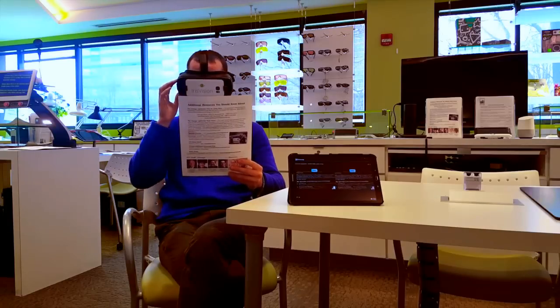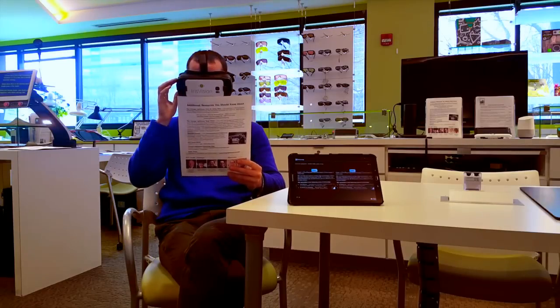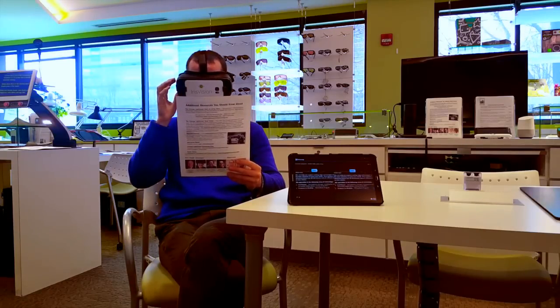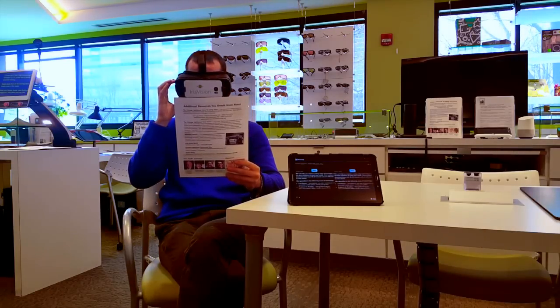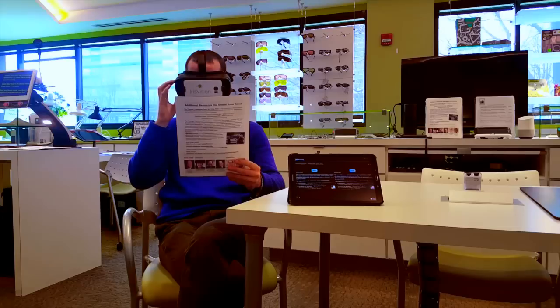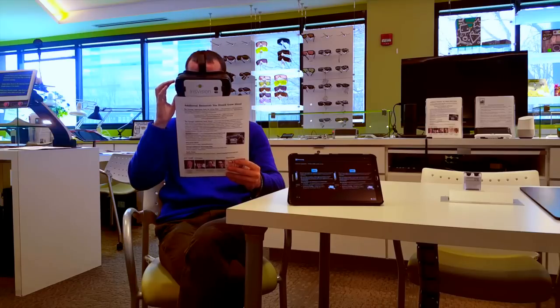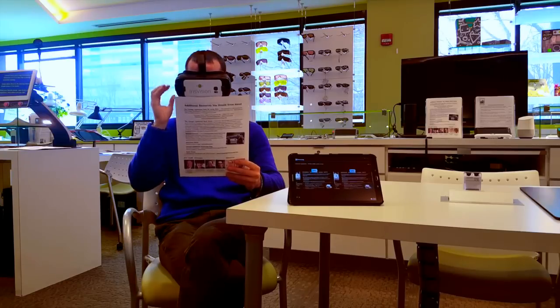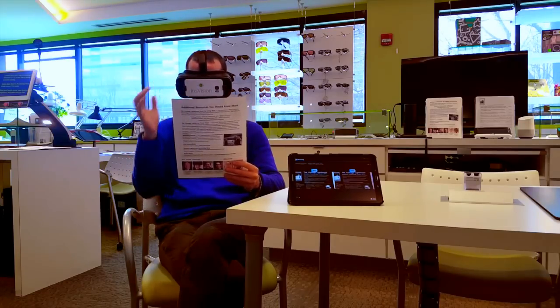So that's really nice. It's a sharp image, it's full screen, it appears really large in front of my eyes, and obviously the reverse contrast can help make things pop and make reading easier. Very cool.